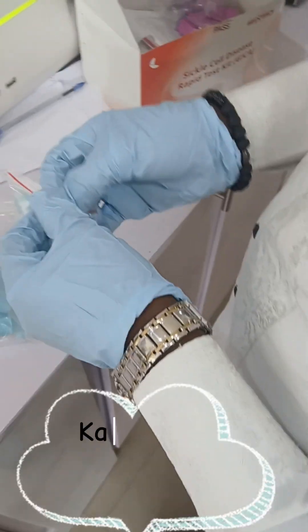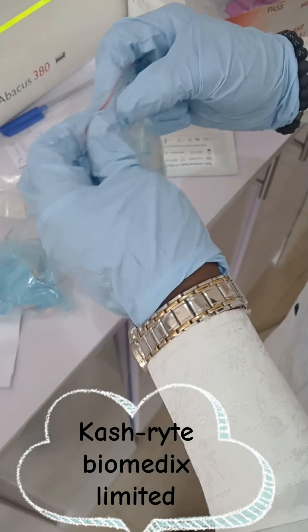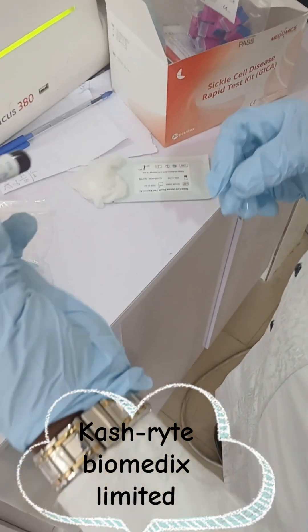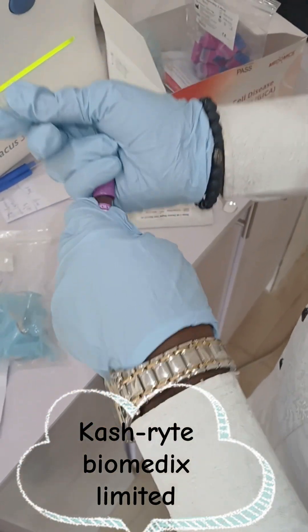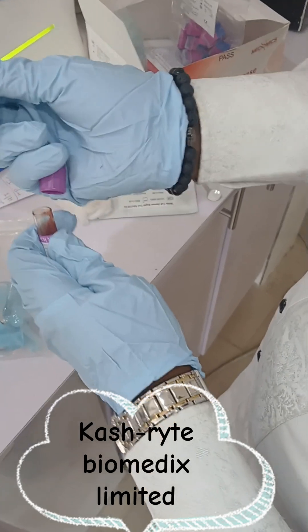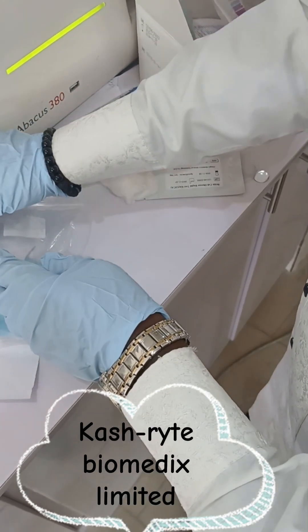What you do is open the capillary tube and bring out one of them like this. If you have a patient you can use the lancet, or if you have a sample like you have here, you can just open it and get the capillary tube to touch the blood sample inside the bottle. You can see the blood drawn inside the capillary tube.